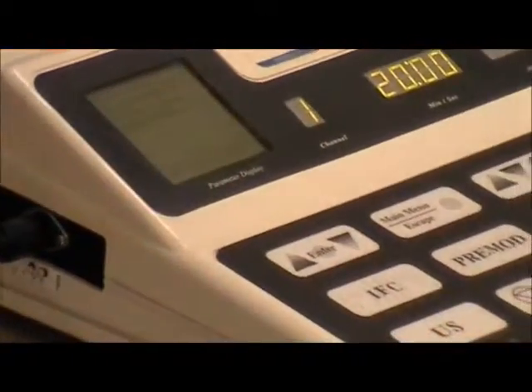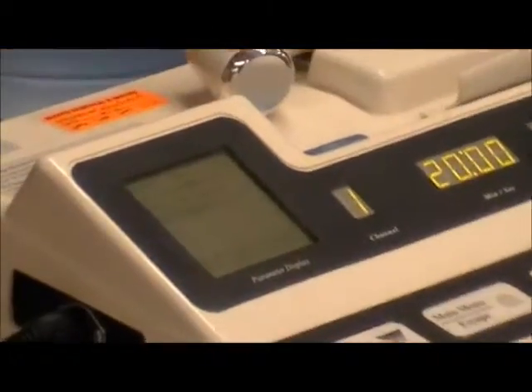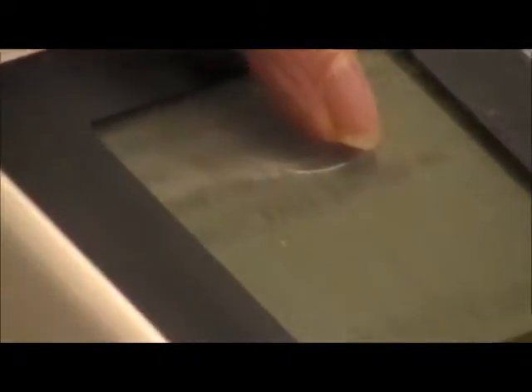The last one is your beat frequency. This one automatically is at between 4,000 and 5,000 hertz. I don't remember the base frequency for certain on this one. I'd have to look in the book to find out. But you're setting what the difference is going to be between channel 1 and channel 2. It defaults at 80 to 150 hertz, it calls it, so 80 to 150 pulses per second. So it will range from 80 to 150 pulses per second throughout your treatment.